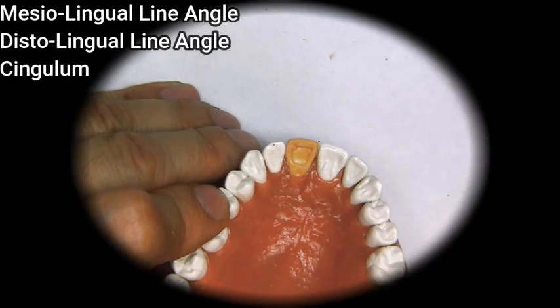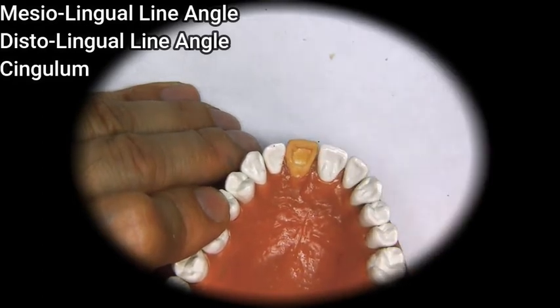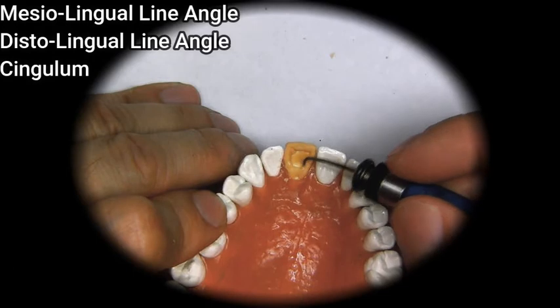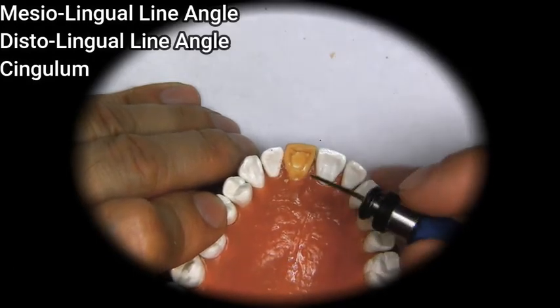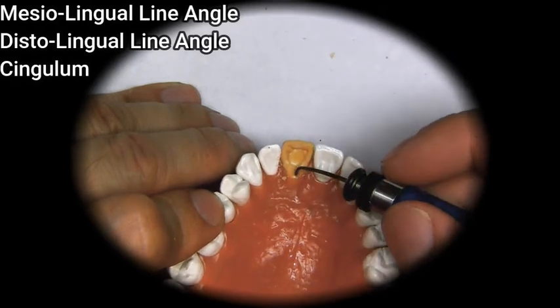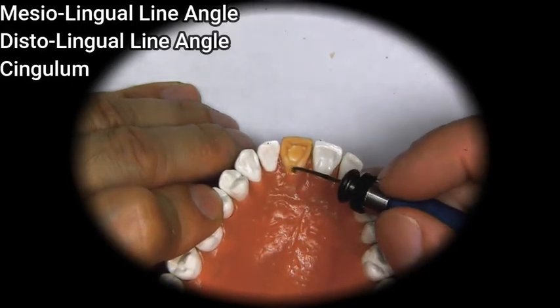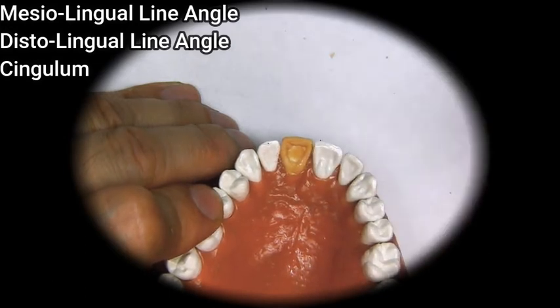Now when we're waxing the marginal ridges, we can make the gingival part of them a slight bit thicker and rounder. And we can make a slight little groove right on the gingival part of the cingulum.